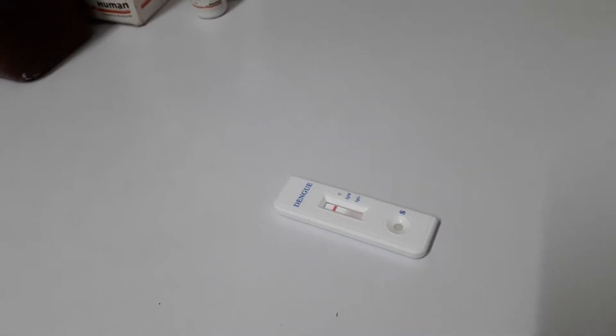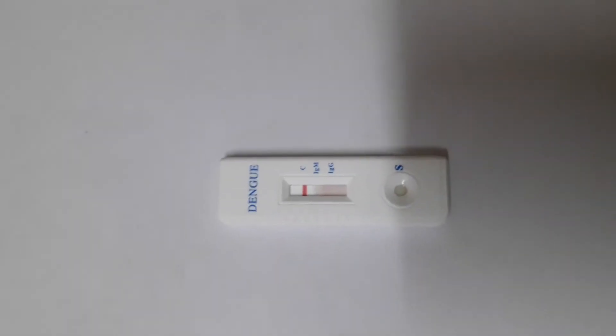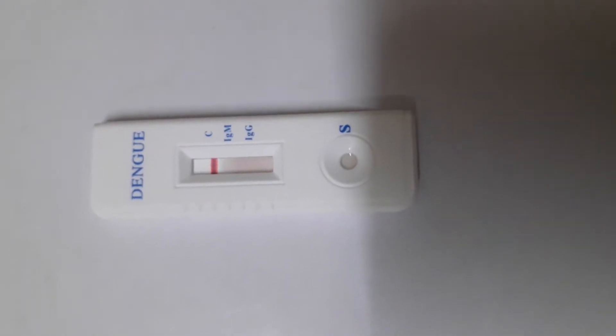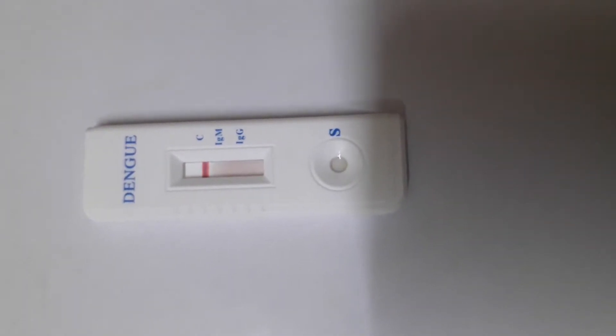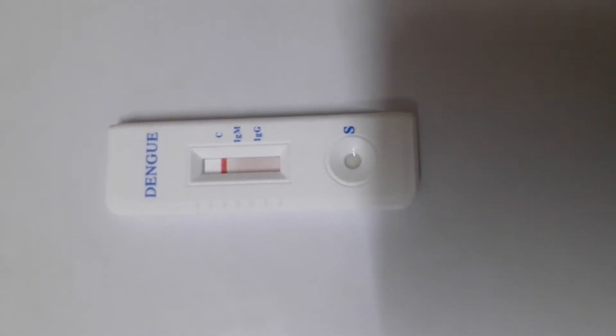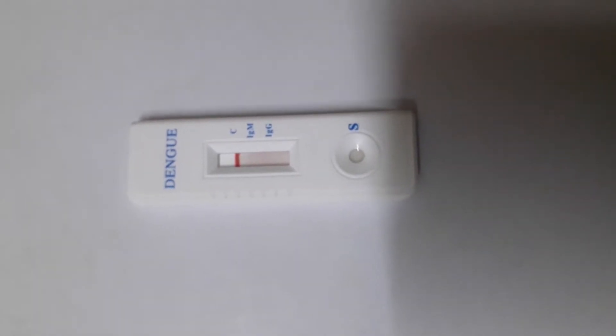The control line will appear in red. The control mark on the serum strip will show. For IgG and IgM, if negative, it will be indicated accordingly.